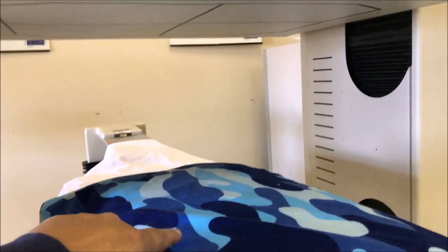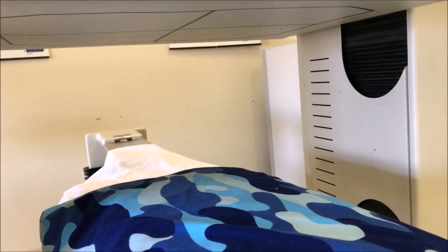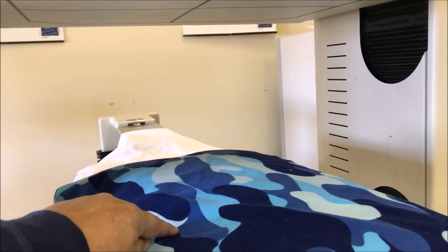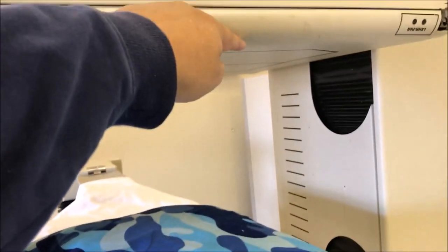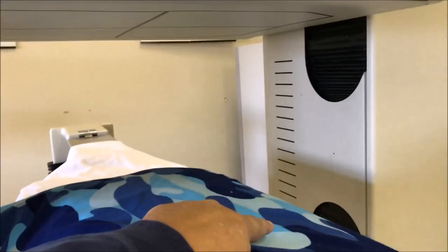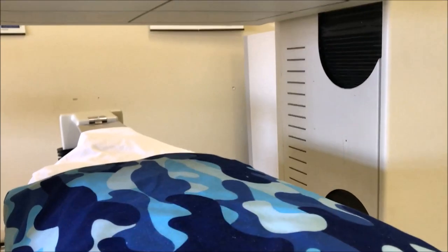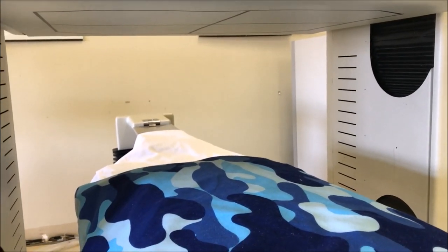If we accepted photons that came from here traveling in this line, then when we generate our image, a photon that started here travels in this direction and gets detected over here — that means on our image this is where it's perceived to come from. So you get that co-location error. We put the dot essentially in the wrong spot on the camera.